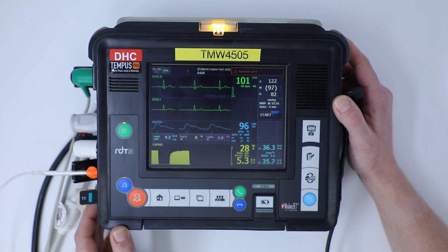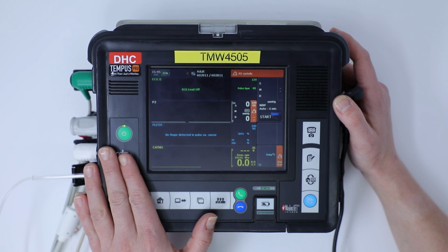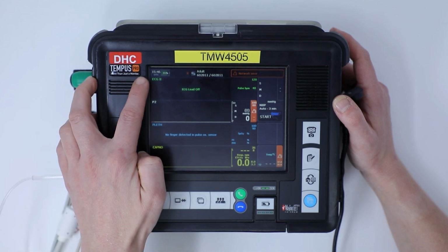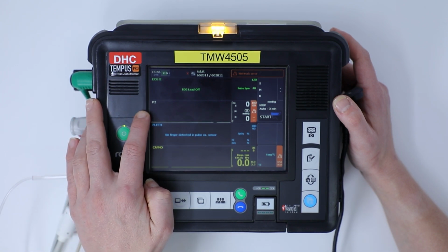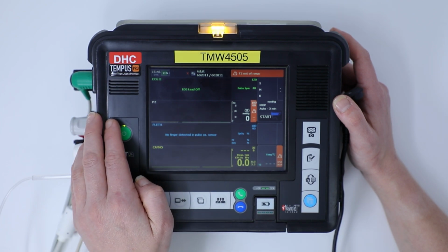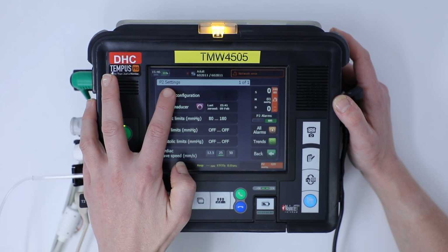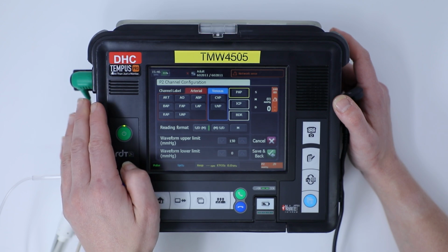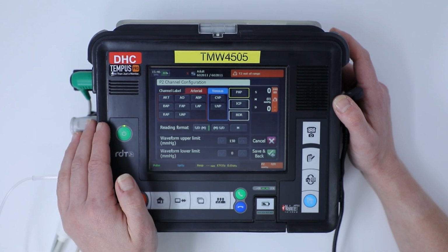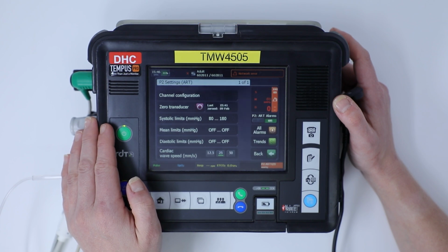to your vital signs. For the purposes of demonstration, obviously I don't have a patient connected with invasive lines, but you can see here that once we connect our invasive pressure cable, it changes one of the ECG traces to a pressure line. Again, the same with adjusting any of the vital signs. If I want to change anything within this, I'm just going to click on it there. And the first option it's going to give me is channel configuration, and we can adjust it so we change the channel label to say an arterial line, a central line, or ICP monitoring. I'm going to select art line and save it and go back.